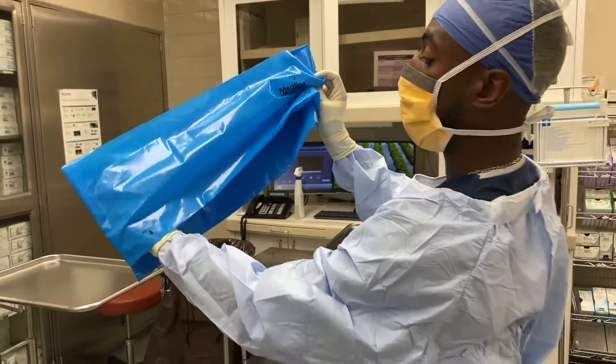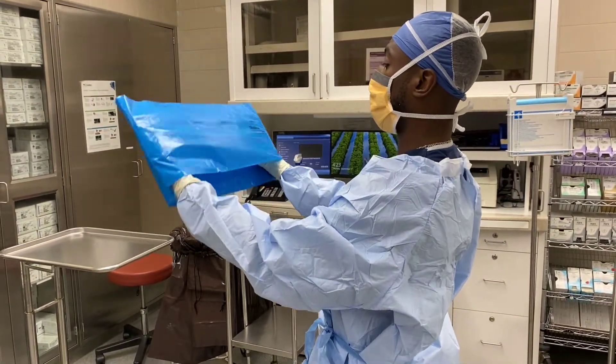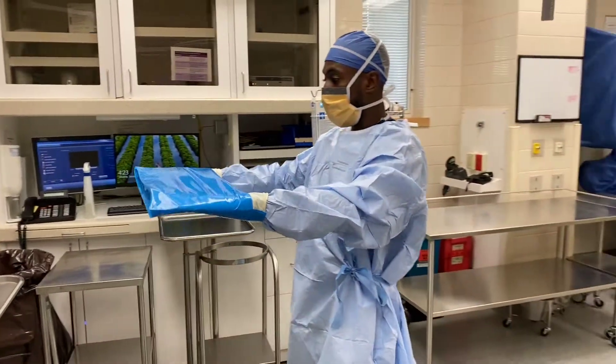So what you do is put your left hand under the cuff like that, and you put your right hand under the cuff like that, and you get a firm grip of it by pushing your arms out.